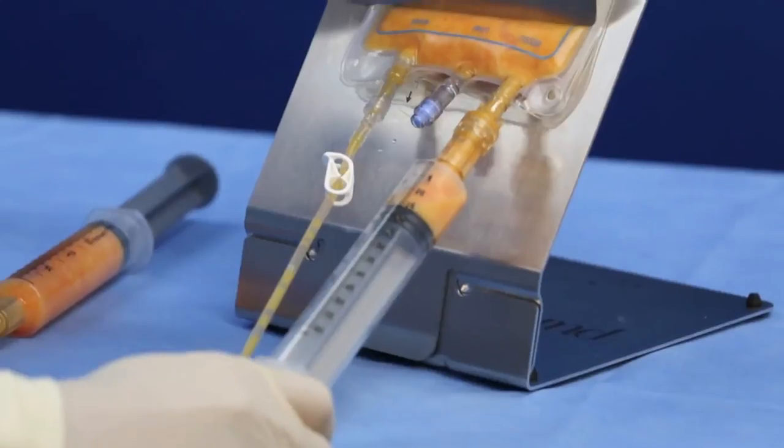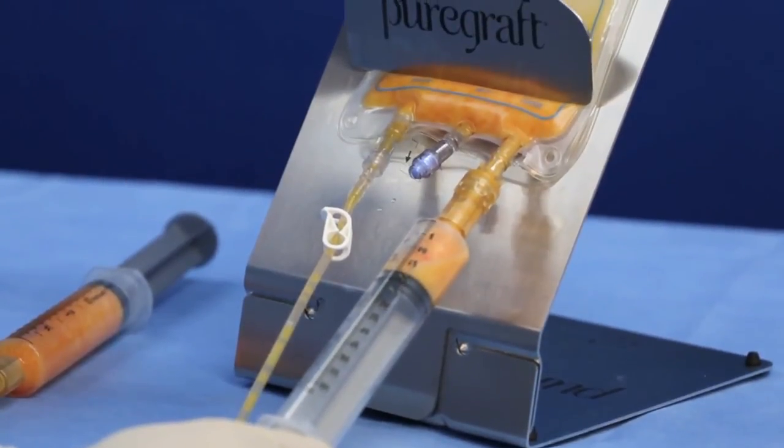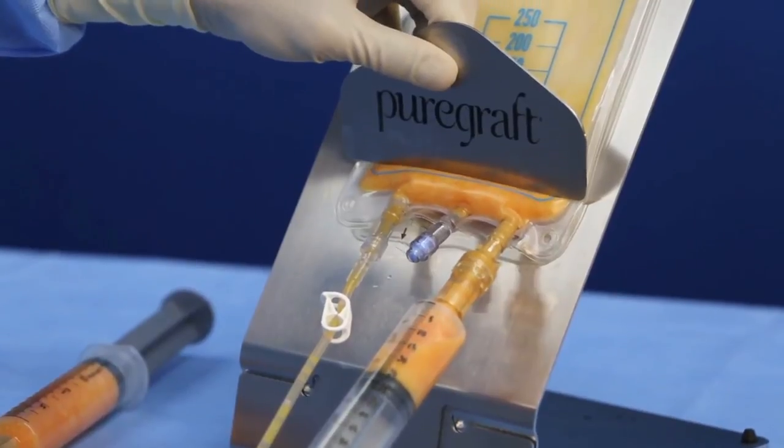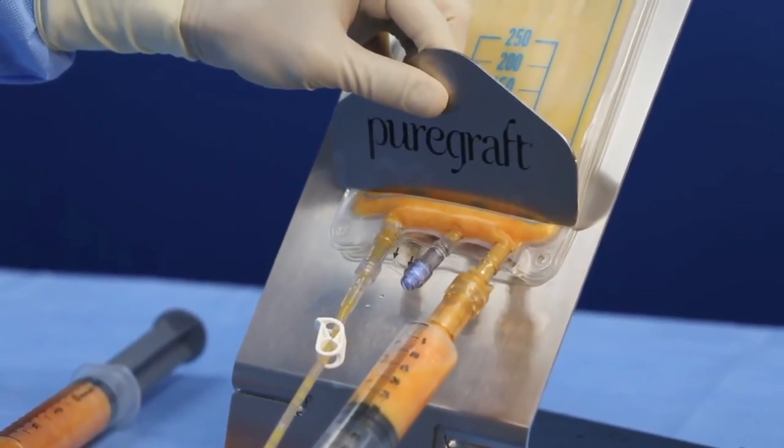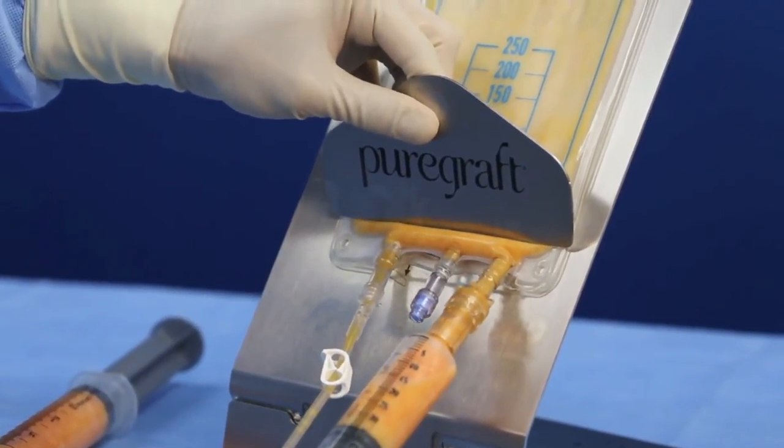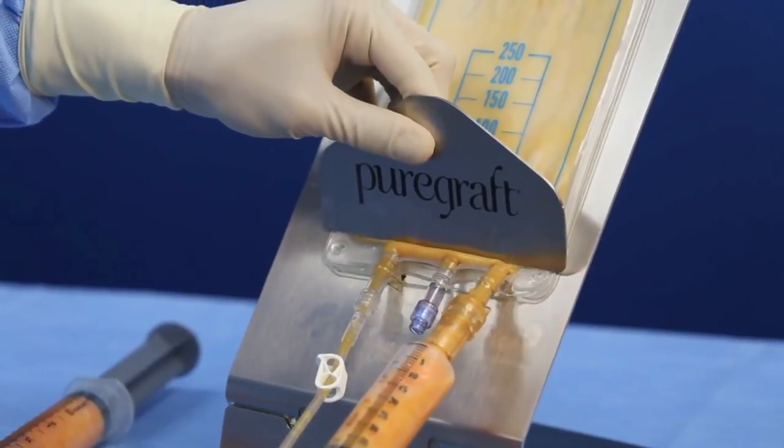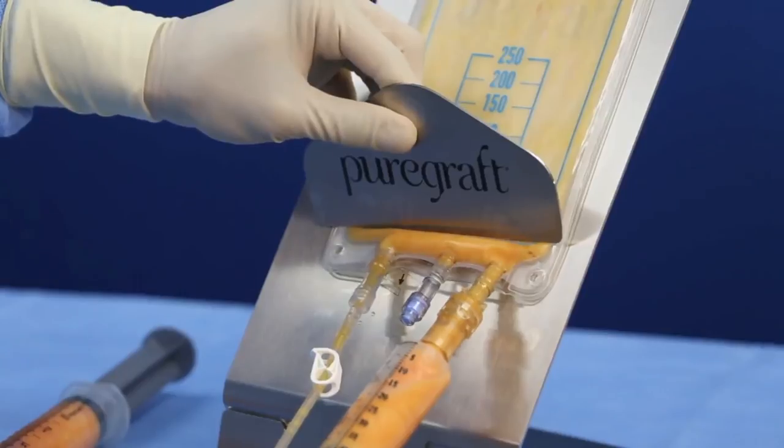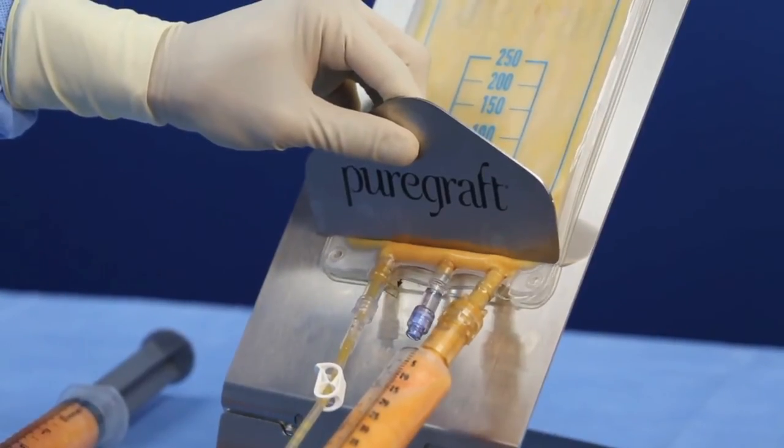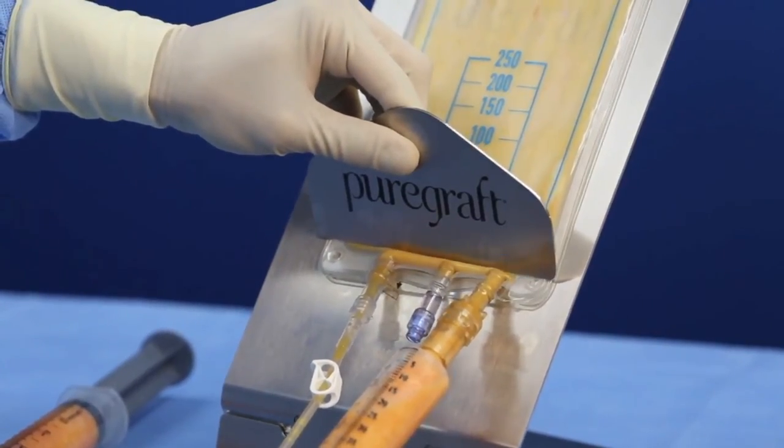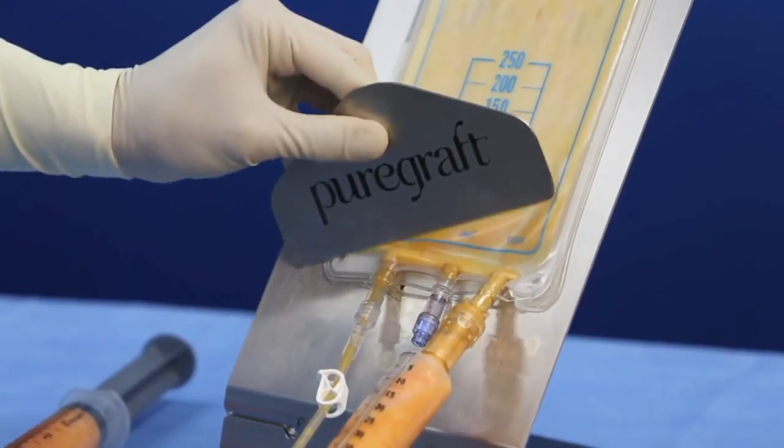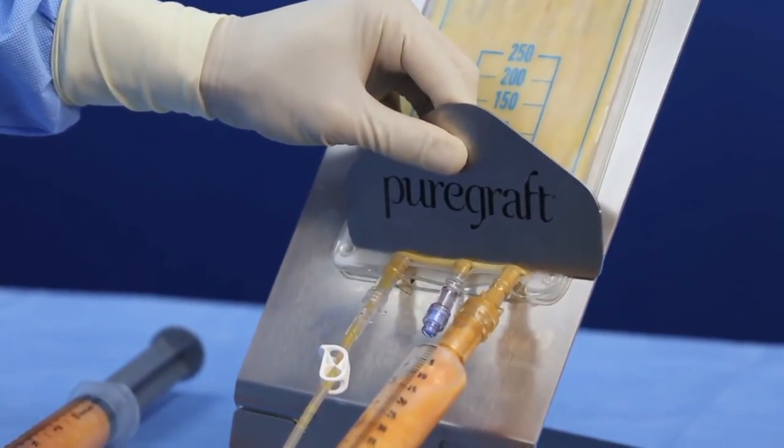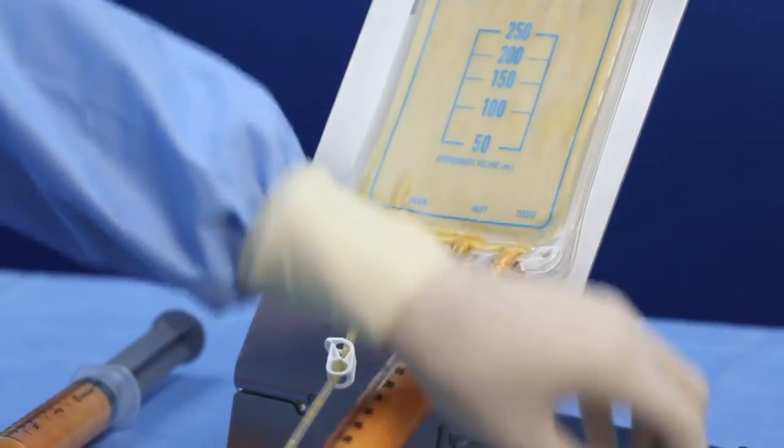Use the slider as needed to guide the graft towards the port.